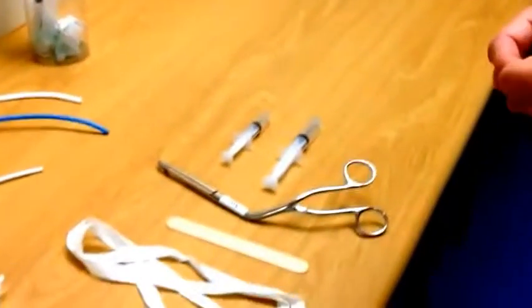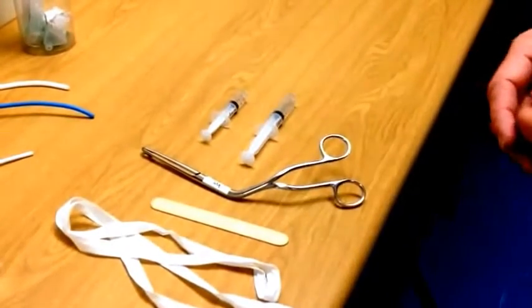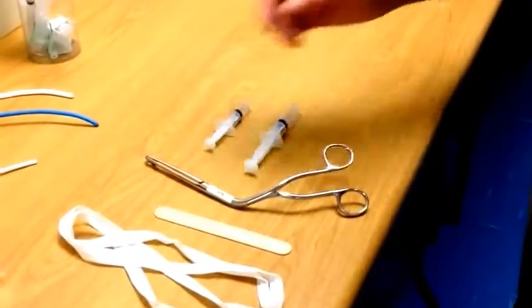Other pieces of equipment that could be of use are wooden tongue spatulas, long stem McGill's forceps, and you should also have your drugs drawn up to the correct dose and ready to use.